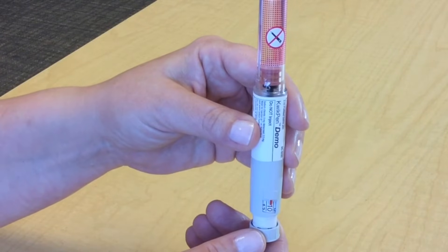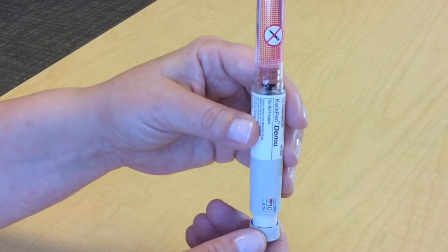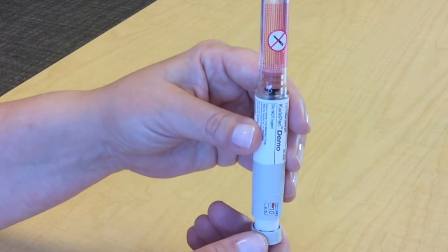Your pen will not let you dial more than the number of doses left in the pen, so don't worry.